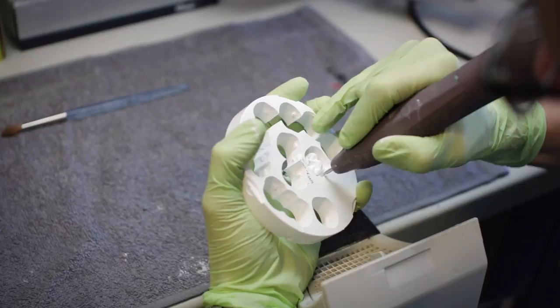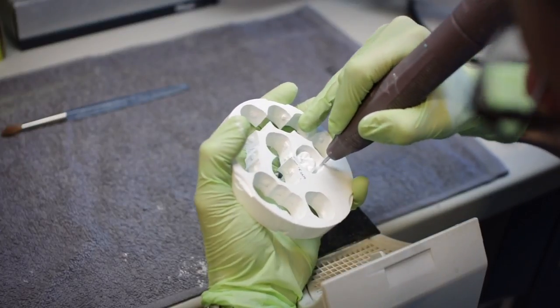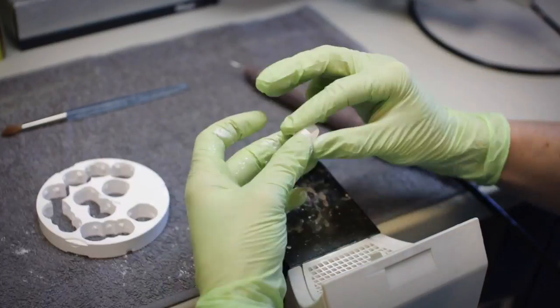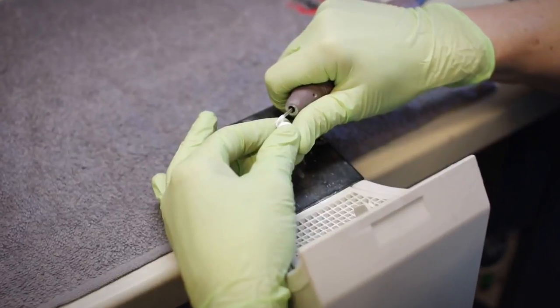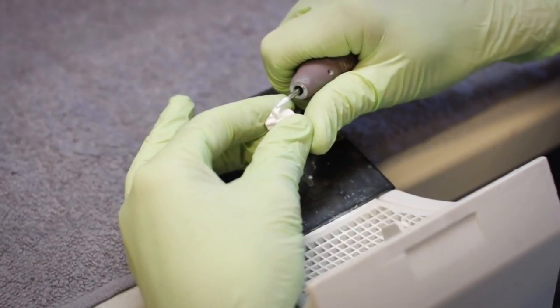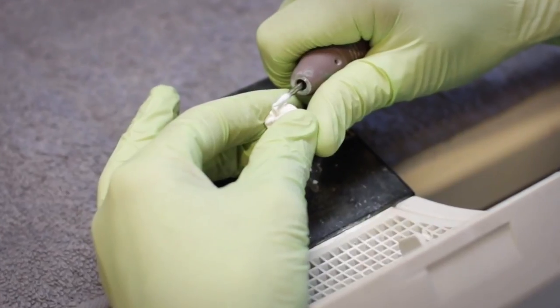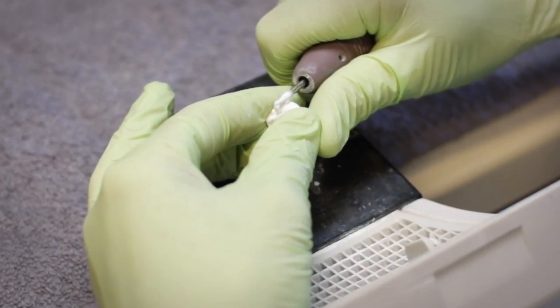Remove equal portions from each connector to prevent the restoration from cracking. At this stage, the material is very fragile. A low speed of a maximum of 7,000 rpm is used.